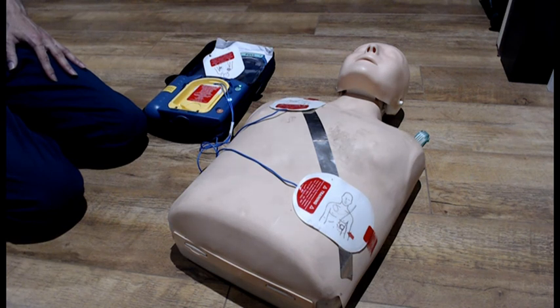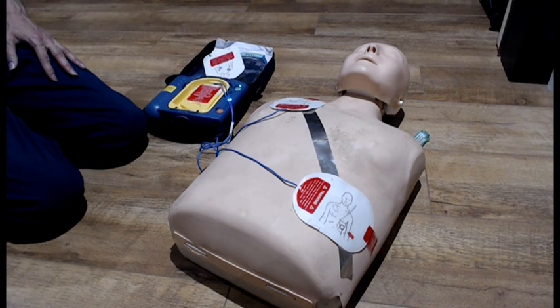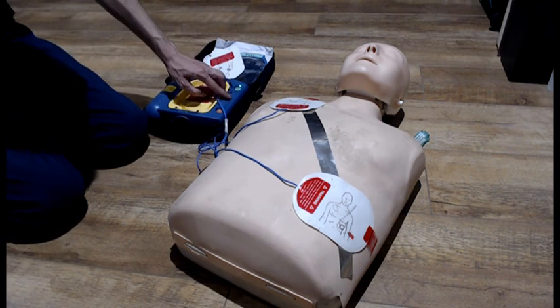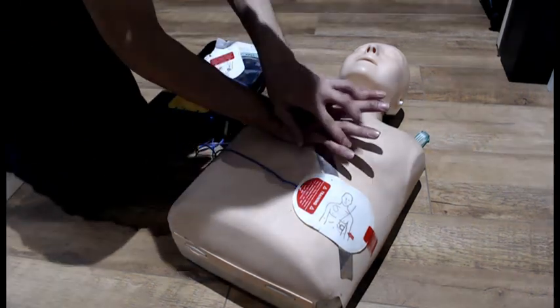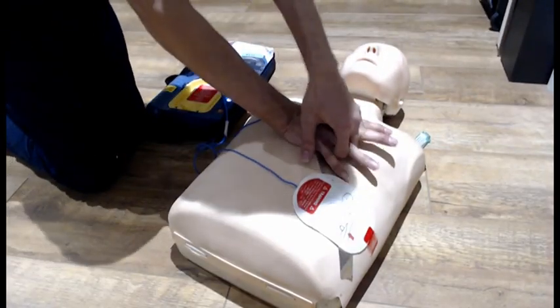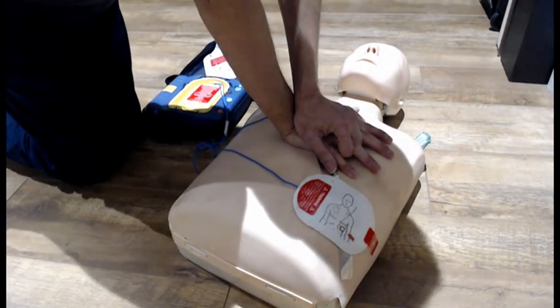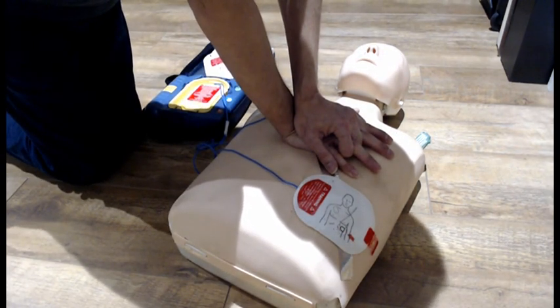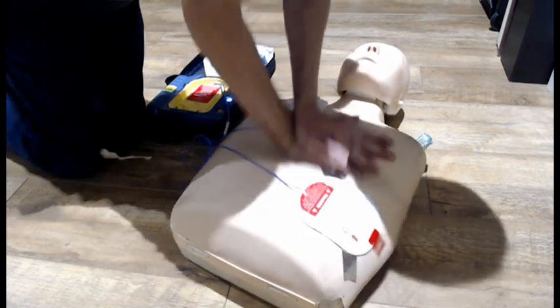Shock delivered. Be sure the ambulance service has been called. It is safe to touch the patient. Start CPR. For help with CPR, press the flashing blue button. Place the heel of one hand in the center of the chest between the nipples. Place your other hand on top of the first.